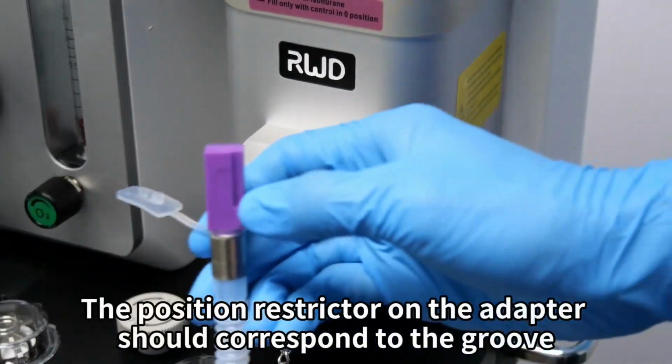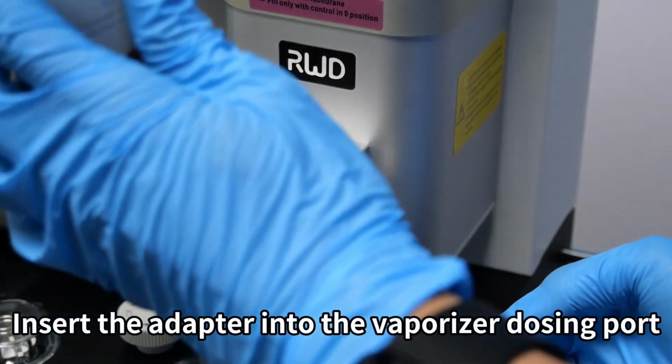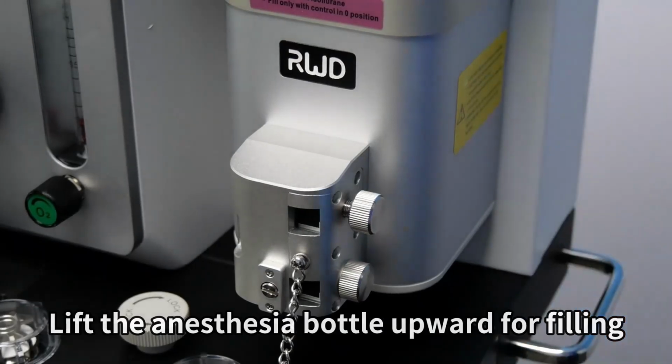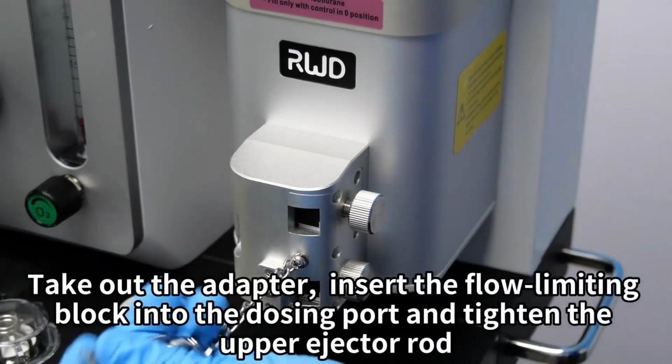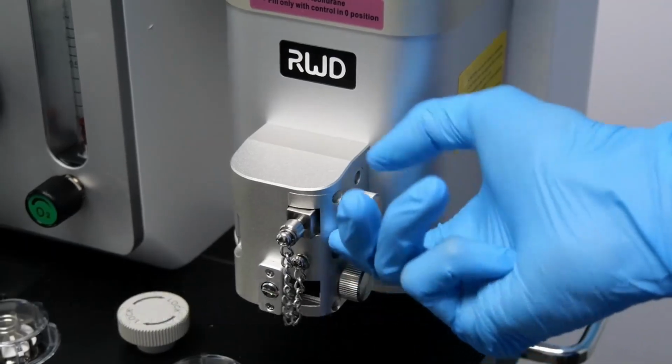The position restrictor on the adapter should correspond to the groove. Insert the adapter into the vaporizer dosing port. Lift the anesthesia bottle upward for filling. Take out the adapter. Insert the flow limiting block into the dosing port and tighten the upper ejector rod.